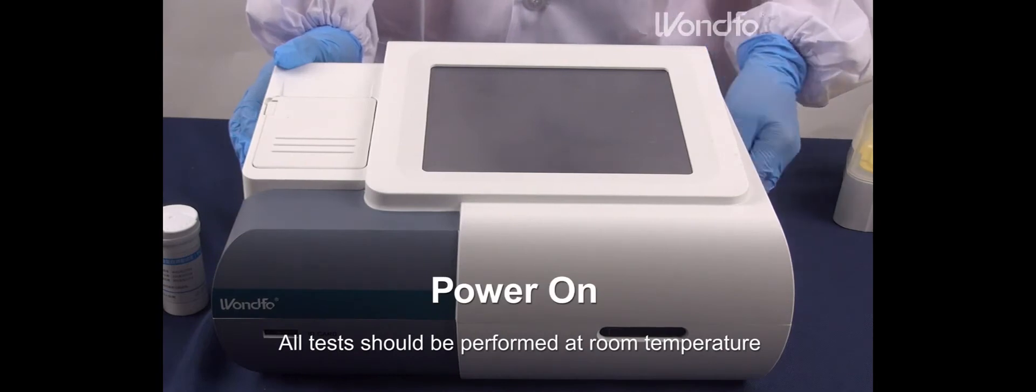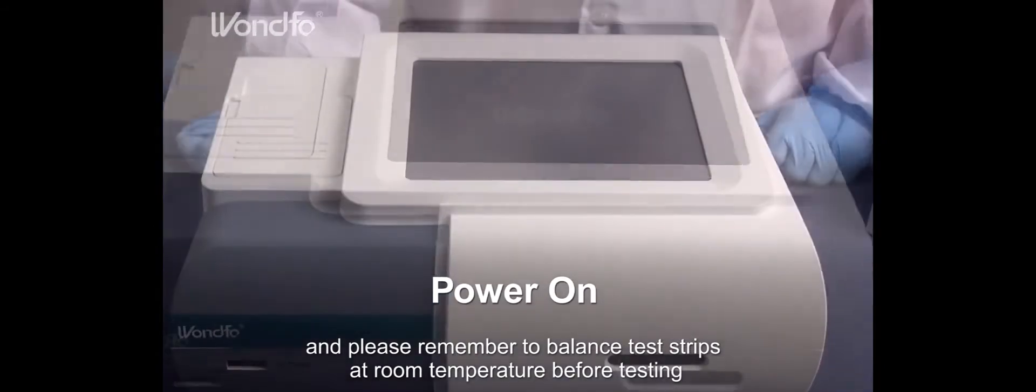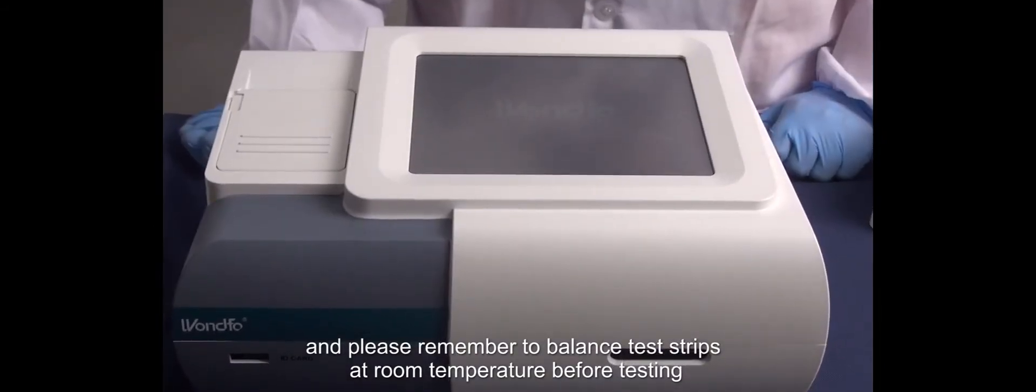All tests should be performed at room temperature, and please remember to balance test strips at room temperature before testing.